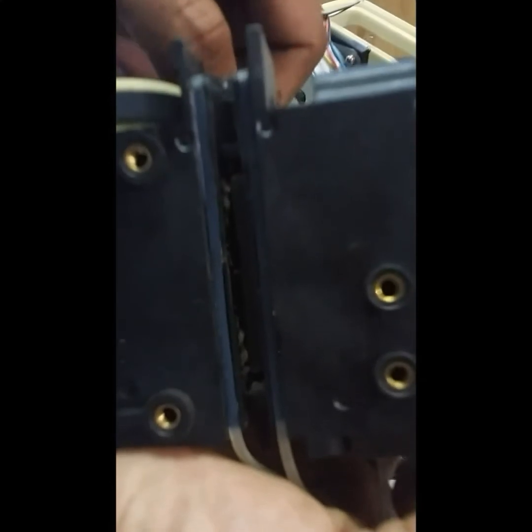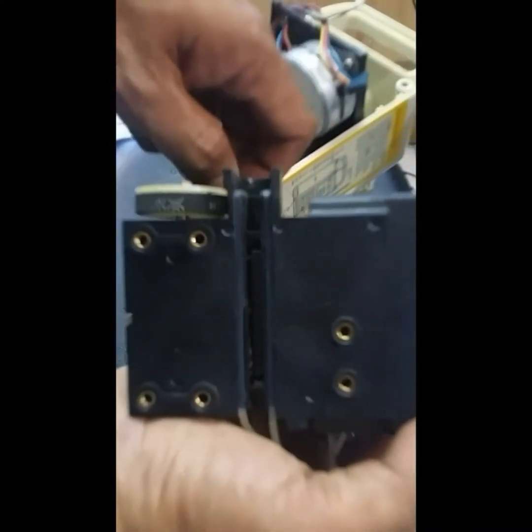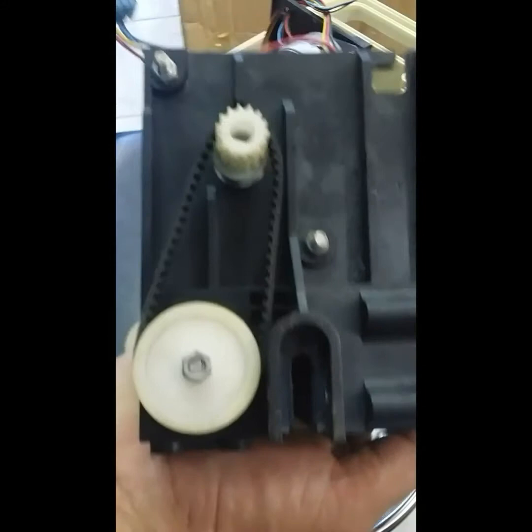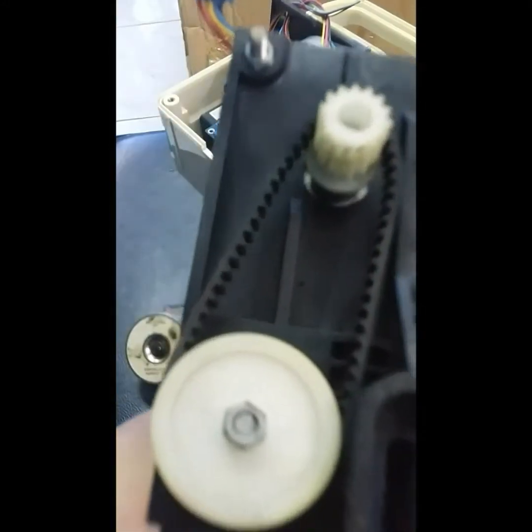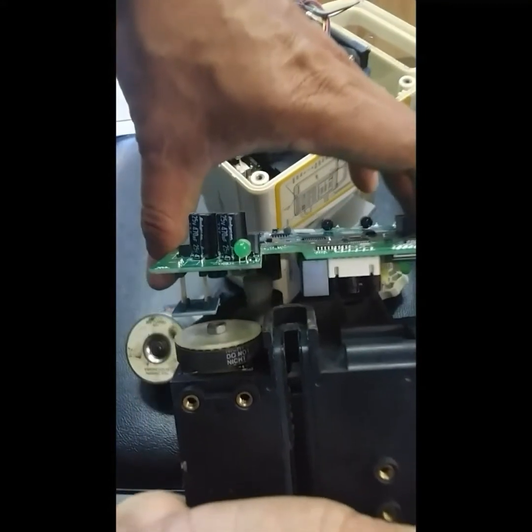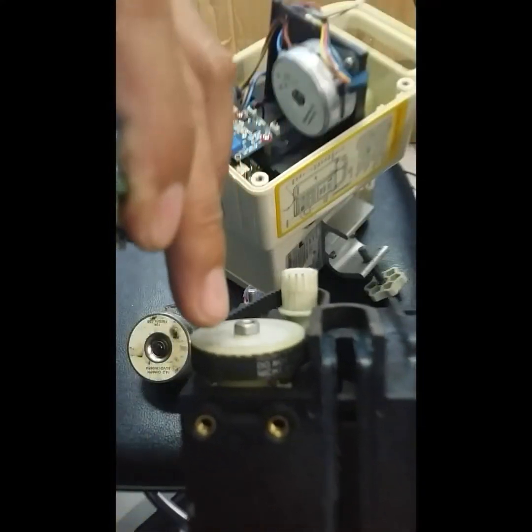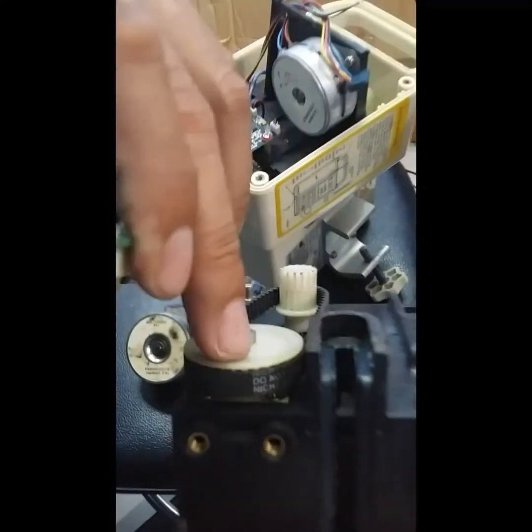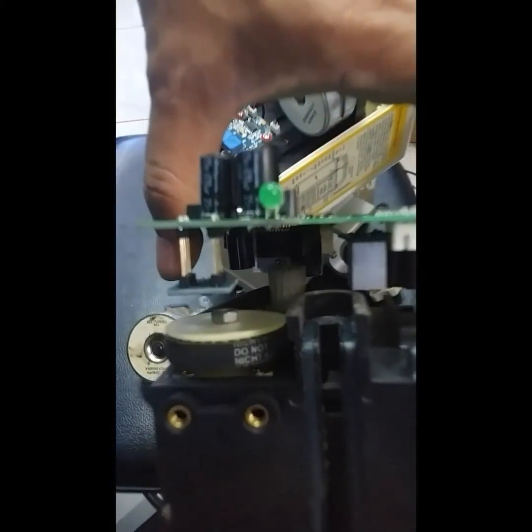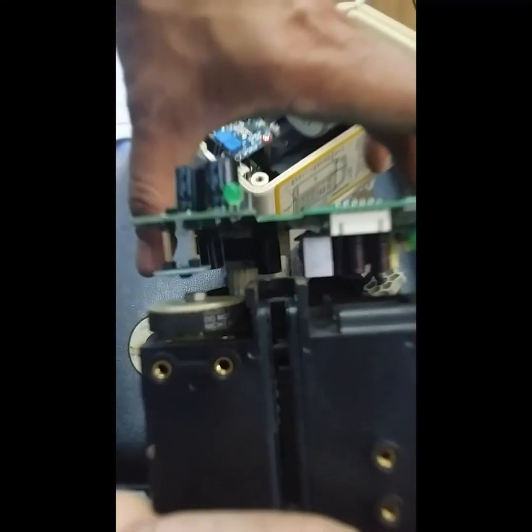There's some kind of wave motion there. You can see the position — it should be like this. This sensor light right here will be connected to this portion so that it will sense the motions of the motor and the peristaltic mechanism at that position.